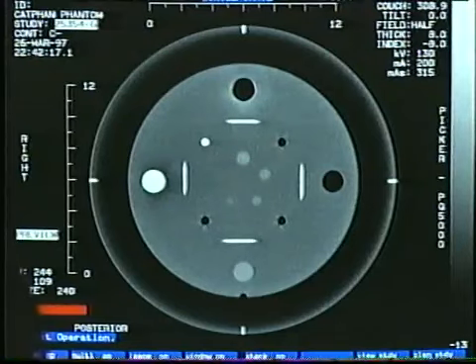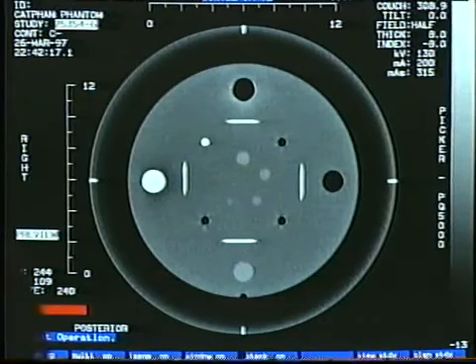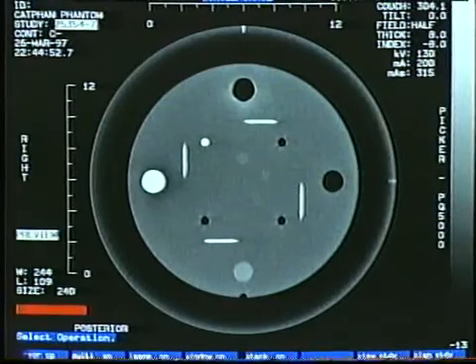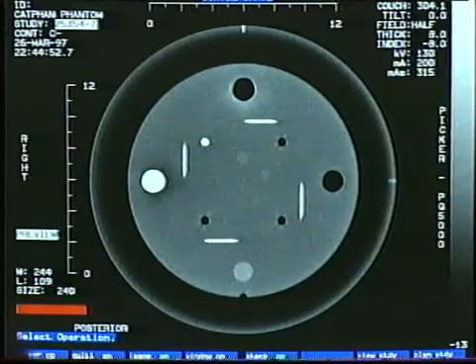The 4 opposed ramps allow us to verify the Phantom position quickly. When properly aligned, the ramps should be centered in the image, as shown here. Here, we've deliberately offset the Phantom by 5 mm. Notice the ramps have shifted in a clockwise direction, indicating the Phantom is not aligned along the Z-axis.